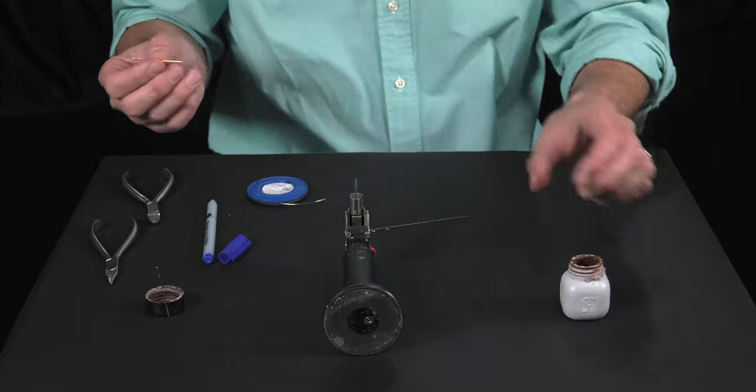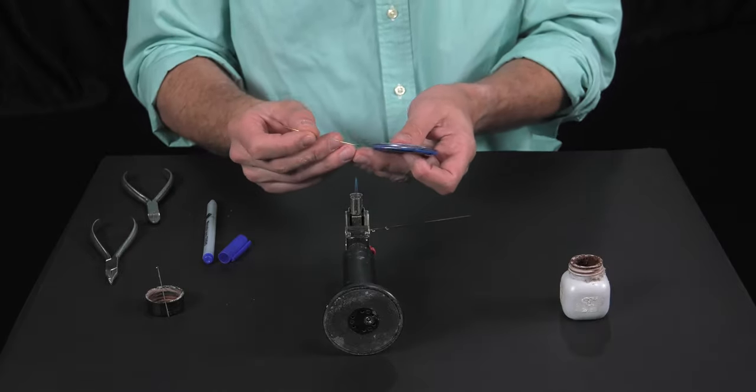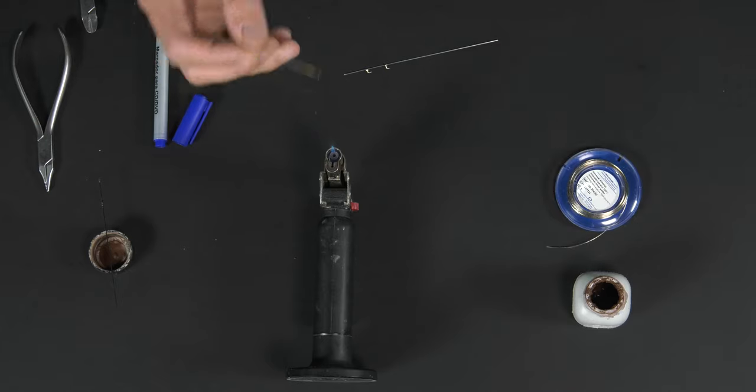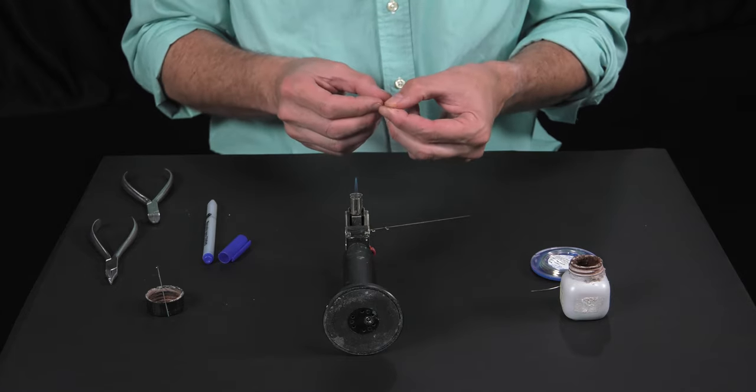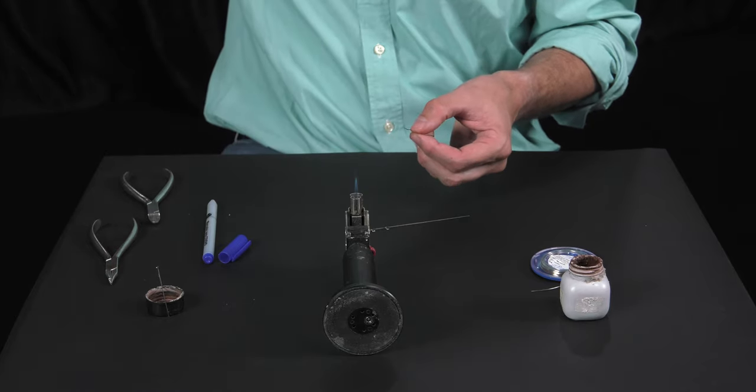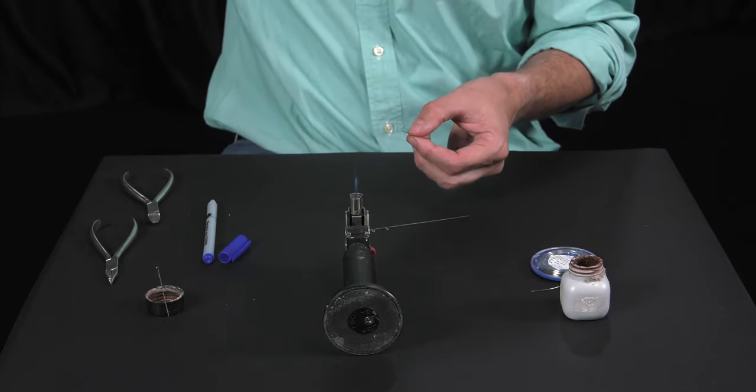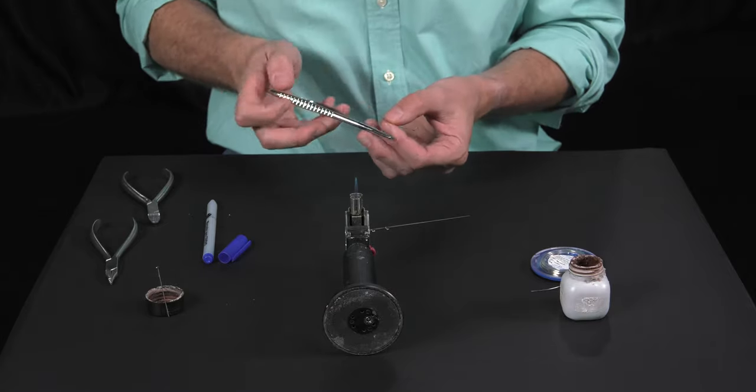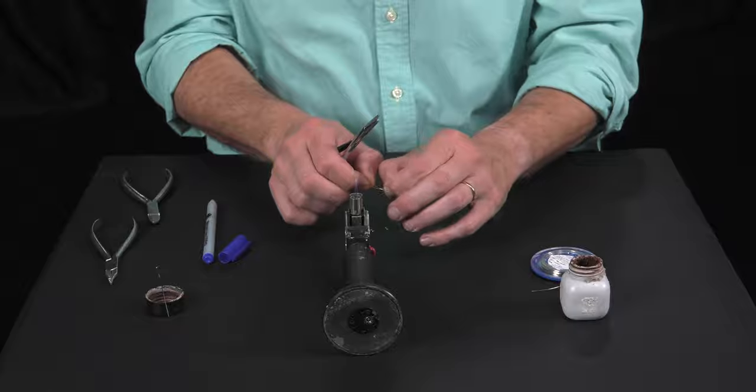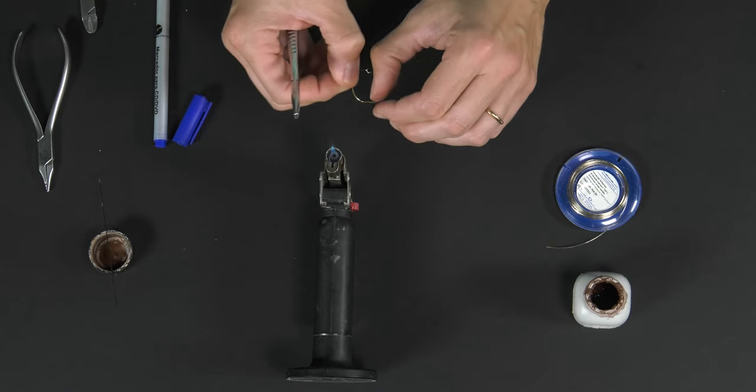In this method we don't have to stabilize the wires, as we said before, since the Matthew-type plier will stabilize our brass wire segment. We're going to bend it in a semicircle shape.